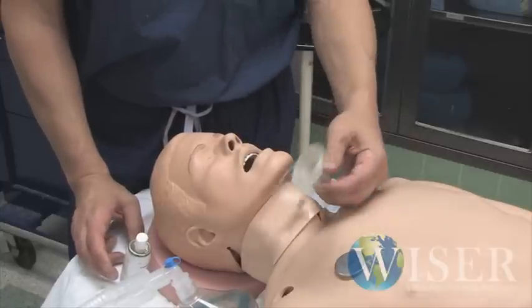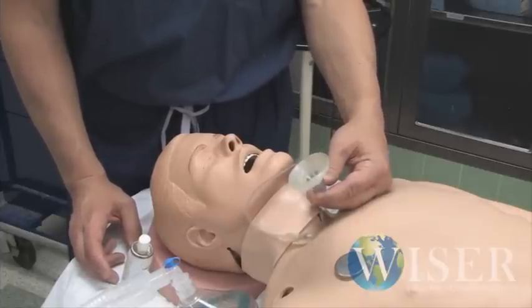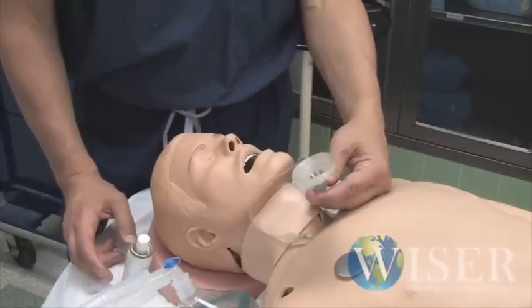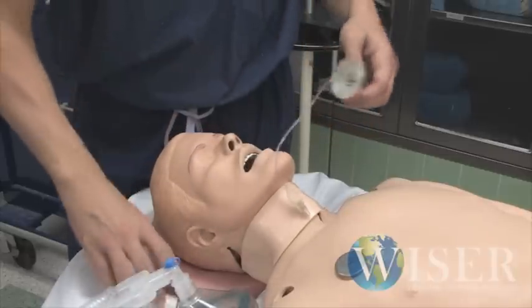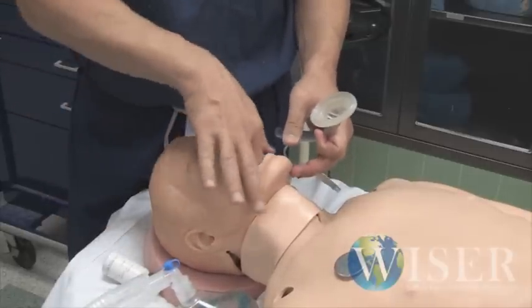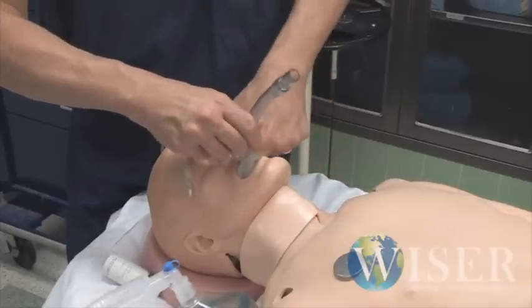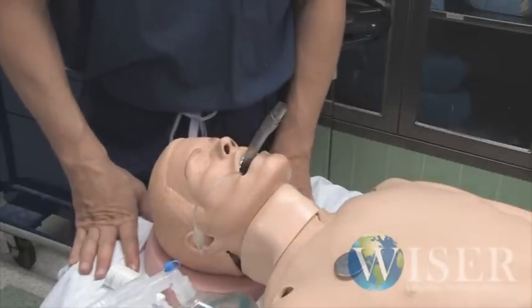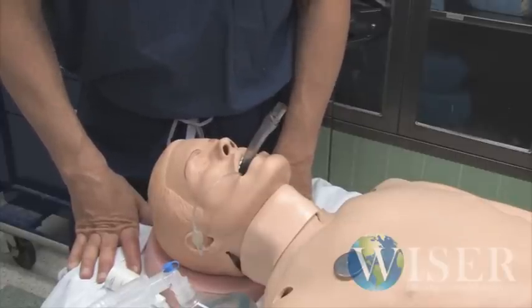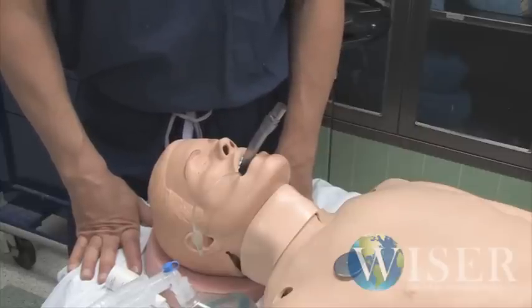You can use adjuvant airway devices like a laryngeal mask airway or a combi tube, and you'll need to in some of our scenarios. The thing to know is that plastic rubbing on plastic can make these devices difficult to insert, so we have a little bit of mannequin lube — give it a little squirt for lubrication. We'll try to remember to squirt the airway for you, but sometimes we forget. To place an LMA inside this mannequin, drop it down to about right here, find the back of it with your finger, and shove it in until it doesn't go any further. Some mannequins seat the LMA very well and ventilate easily; some not so much. A cohort may step up and confirm whether you're ventilating nicely or if there's no chest movement.